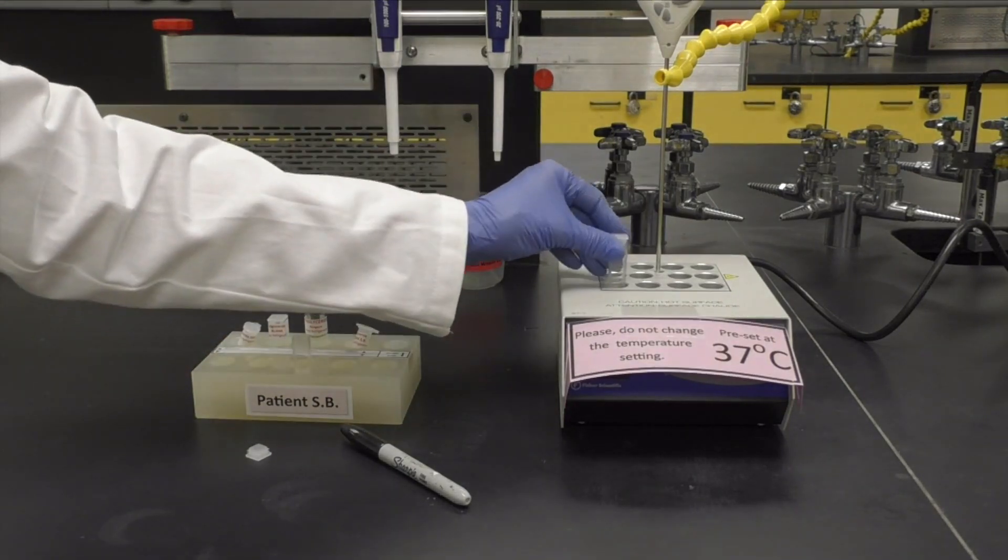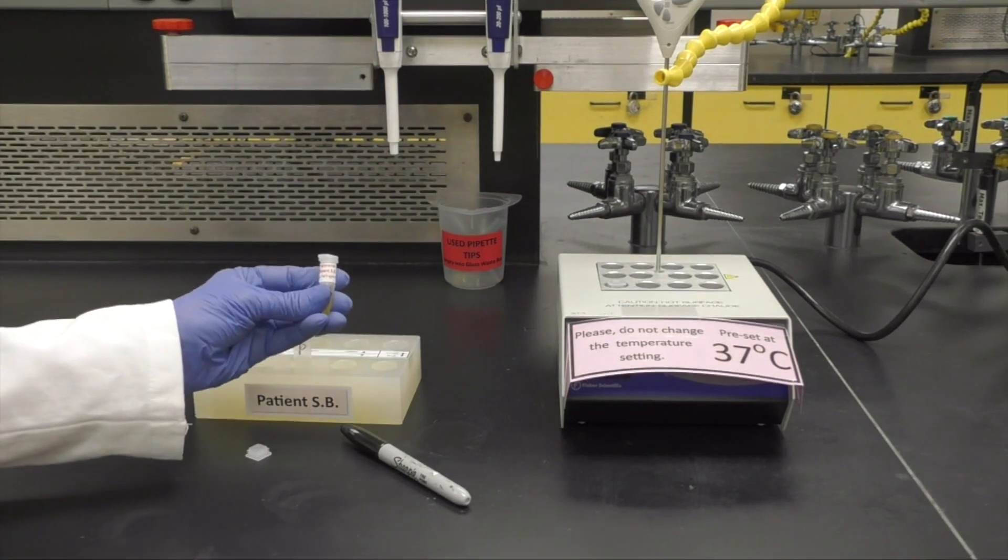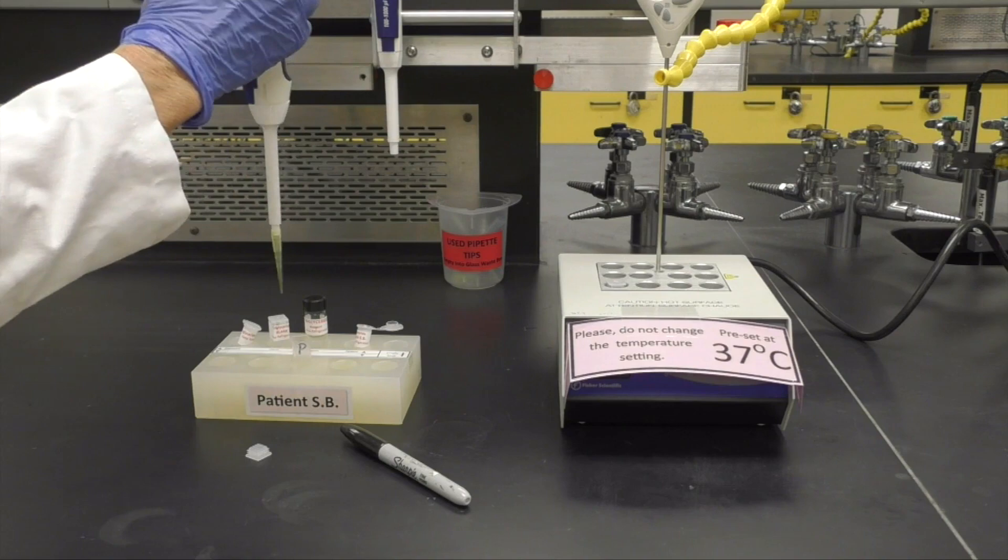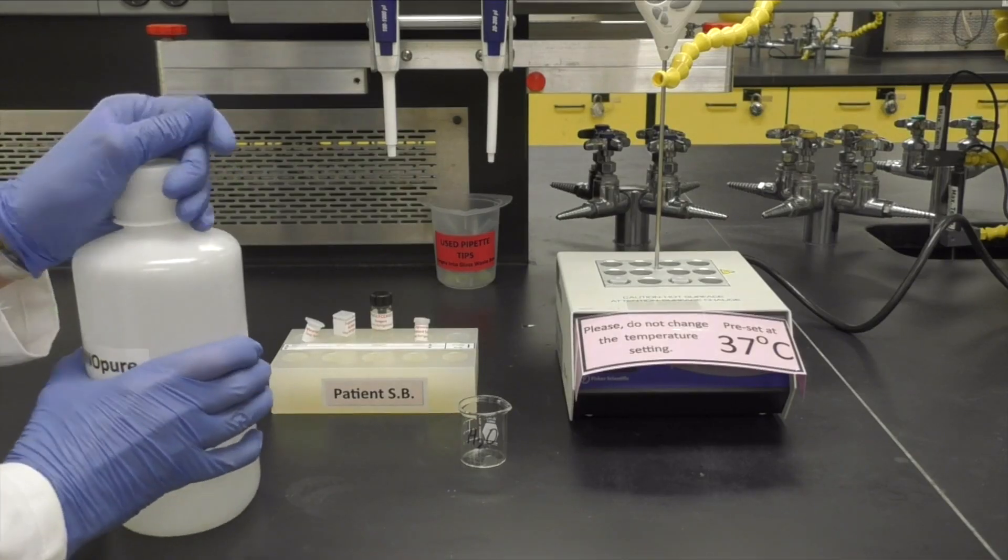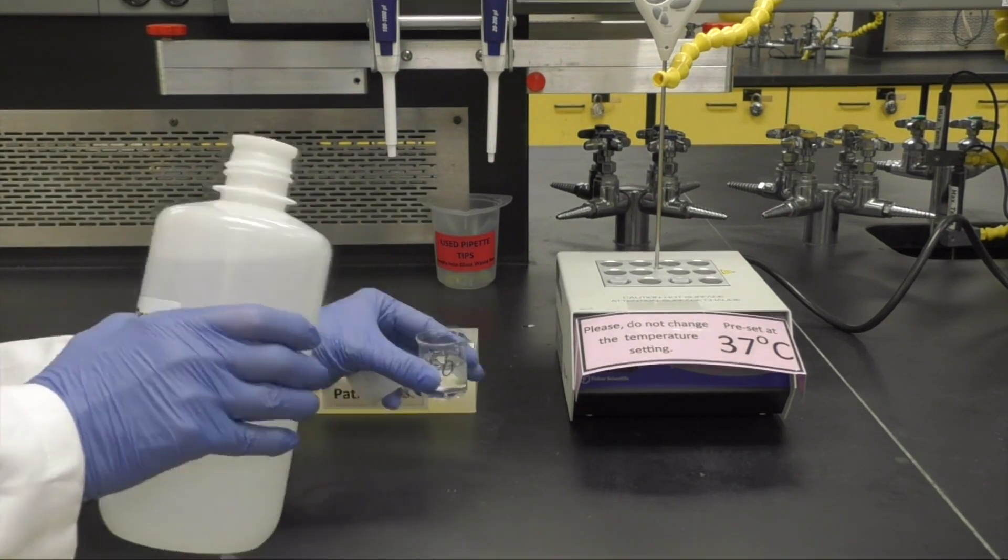After about 5 minutes, you can add 20 microliters of your patient sample to the remaining cuvette and begin warming it for 10 minutes. While the samples are warming, pour some Nanopure water into a 20 milliliter beaker.